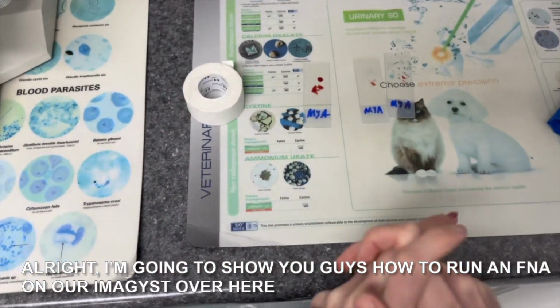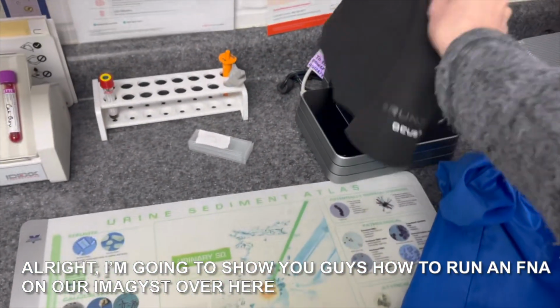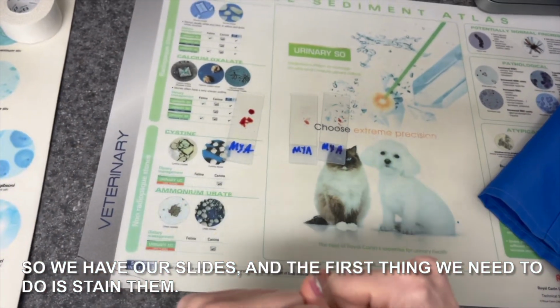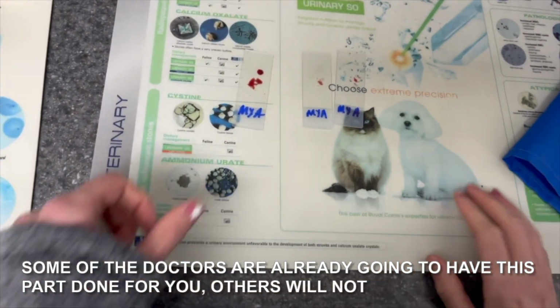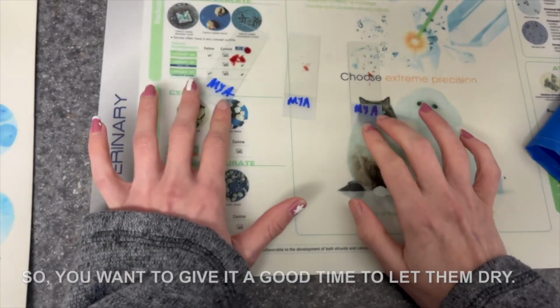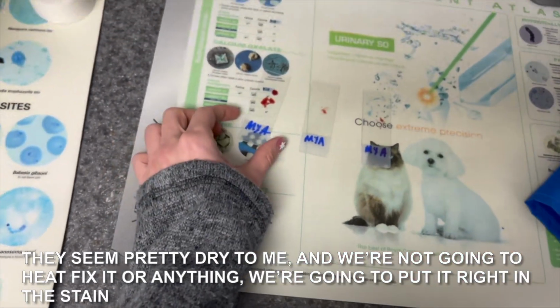All right, I'm gonna show you guys how to run an FNA on our Imagyst over here. So we have our slides, and the first thing we need to do is stain them. Some of the doctors are already gonna have this part done for you, others will not. So you wanna give it a good time to let them dry. They seem pretty dry to me, and we're not gonna heat fix it or anything. We're gonna put it right in the stain.